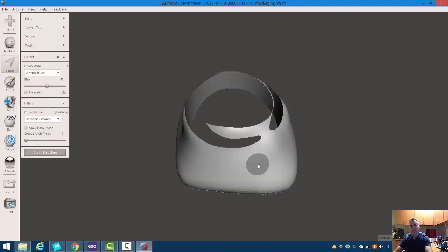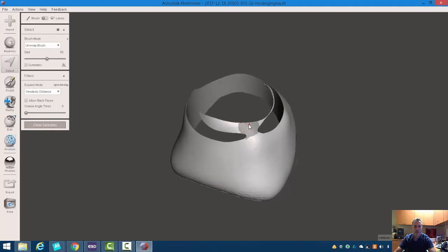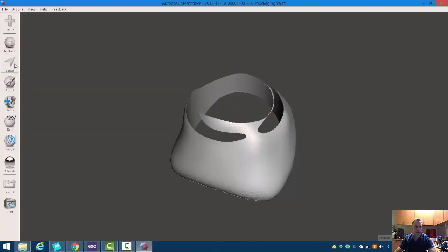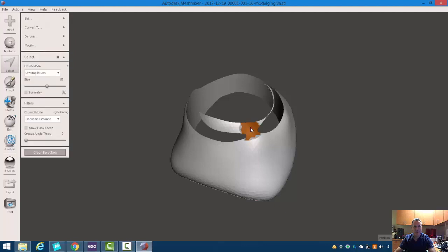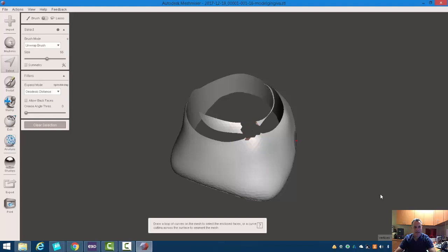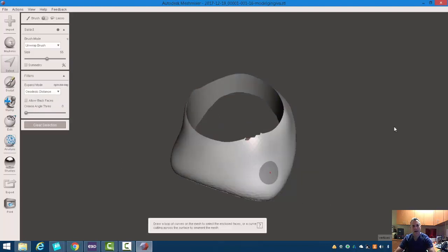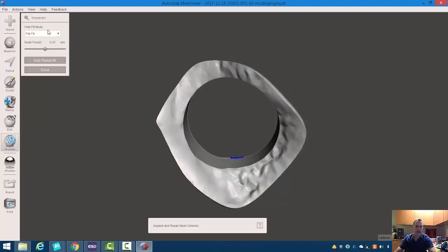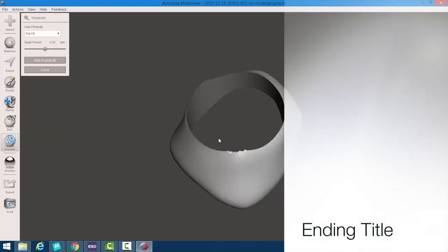You can double click and hit invert to select that little bit, then hit X. We can also just sort of get rid of this portion here — hit X, then double click and invert and get rid of that. So now we have this a little bit better. We can go into analysis and inspector and auto repair all, so we can close it up. Now that's definitely printable.